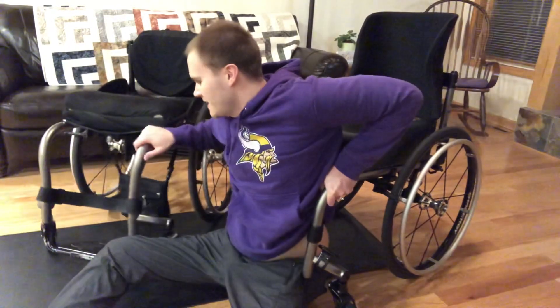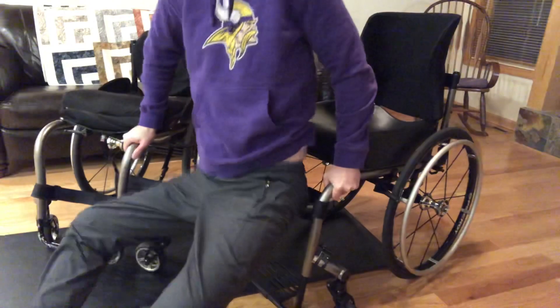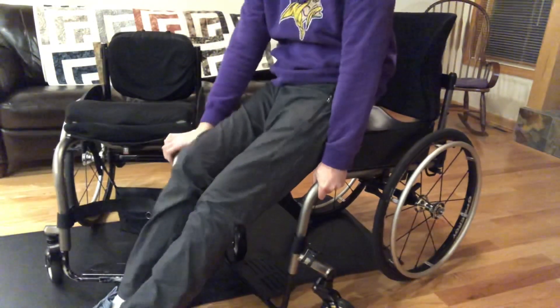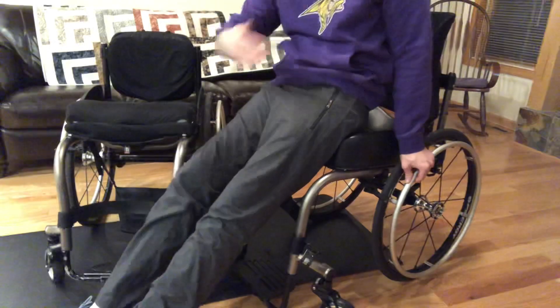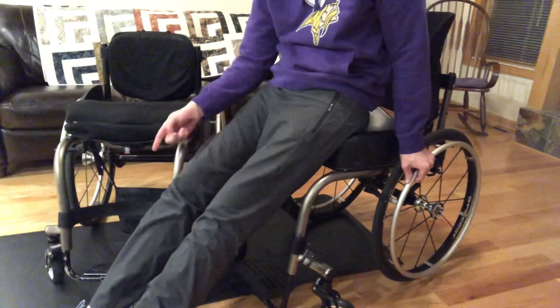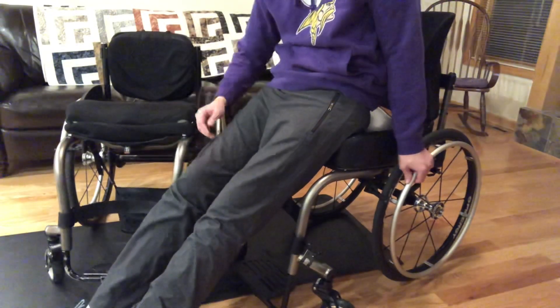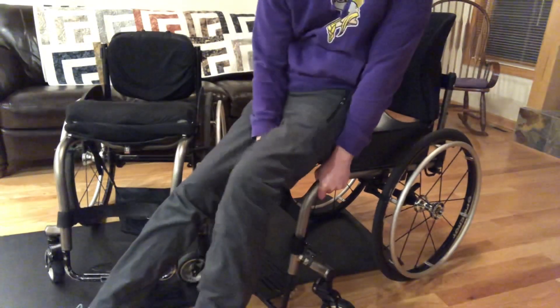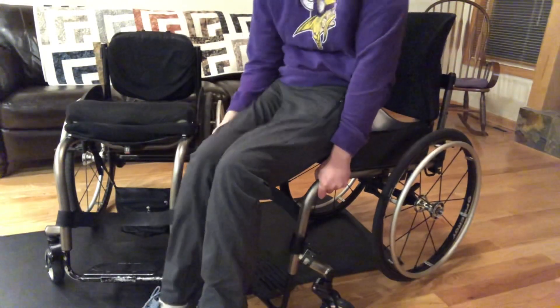It's kind of tricky. I'll try holding on to this and lifting it up. So if I can hold on to something on the other side I can get up into this chair. Otherwise I'm way too forward because on this one I have more space to get on the floor and get up. So I'm actually going to get onto the floor from this high chair and get up in this chair to show you the difference.